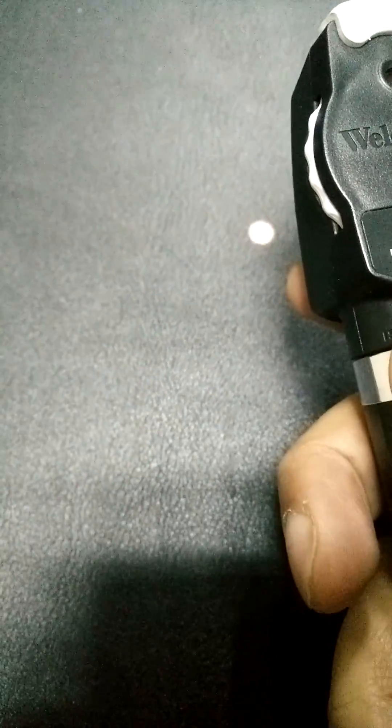So now let's look at the different apertures. I think it has about 6 apertures. First of all, this is the largest aperture that we have. This one is used for the completely dilated pupil and helps to give a very clear visualization of the retina.